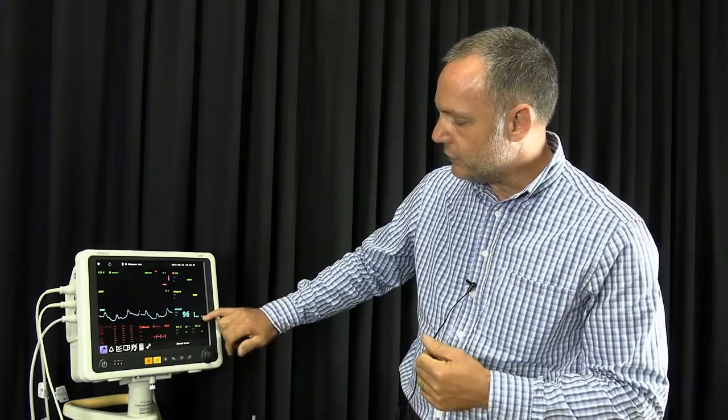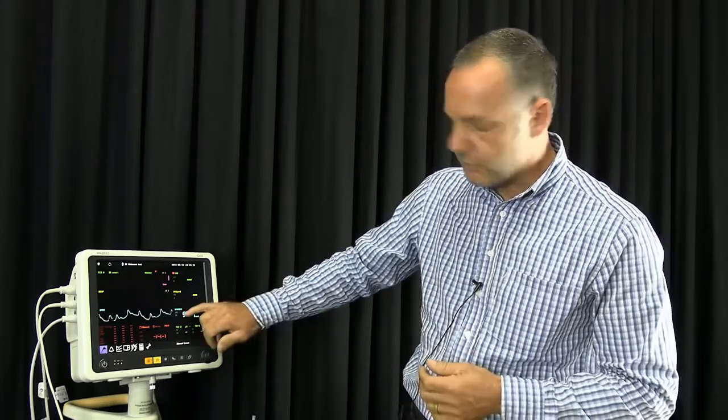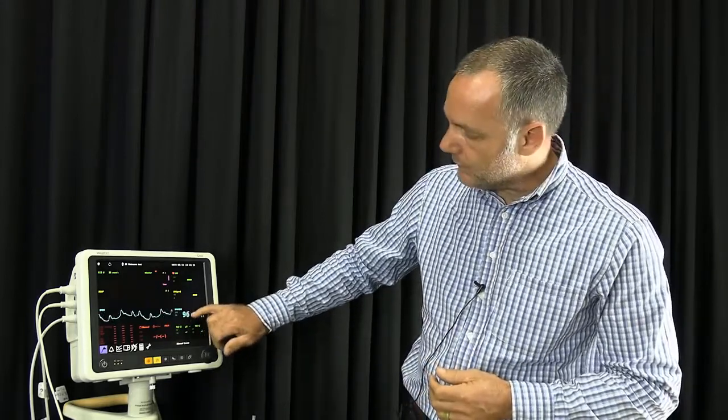And then we have our perfusion index showing us how good the signal is that we get, and then our value. Now we are testing at 96, and I'm set at 97 here.